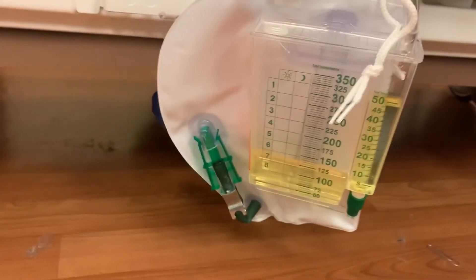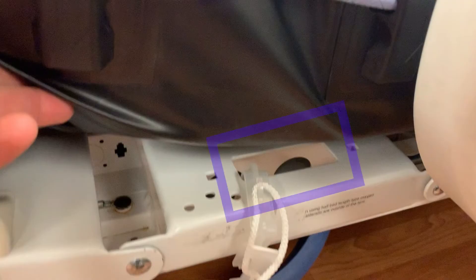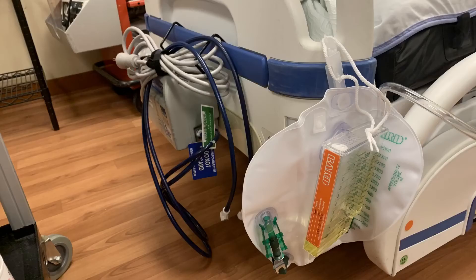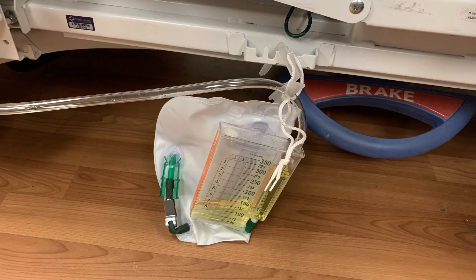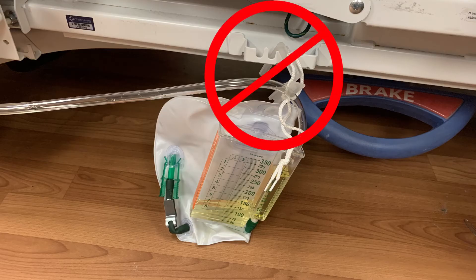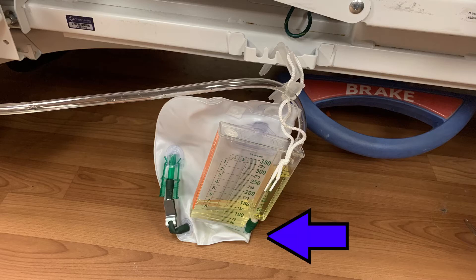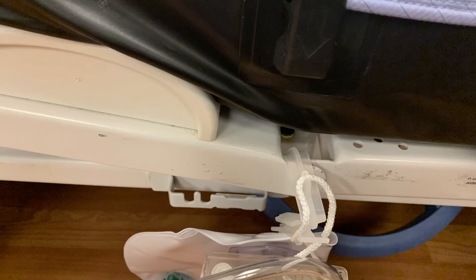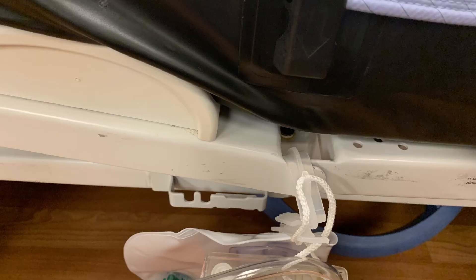When placing the Foley bag, there are primarily two location options on the Stryker beds. The first is near the center of the bed — there is a small open rectangle cut into the bed frame that is used primarily for the placement of wrist restraints. The second is at the foot of the bed, where there is a bracket positioned near the bed's footbrake. Although Stryker intended this for Foley bag placement, it is not appropriate for use with the BARD product, as the Foley bag will touch the floor when the bed is in the low position, allowing significant contamination. Another commonly seen placement is in the bed hinge, which is also not appropriate because it could cause damage to the bed or the Foley system when the bed position is changed.